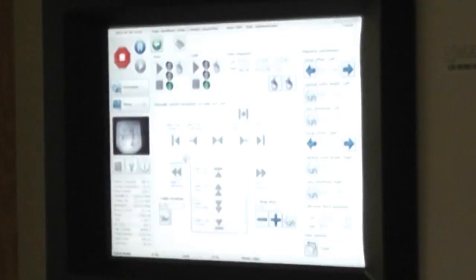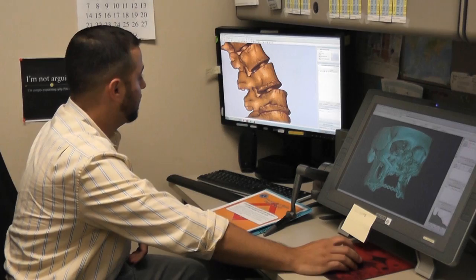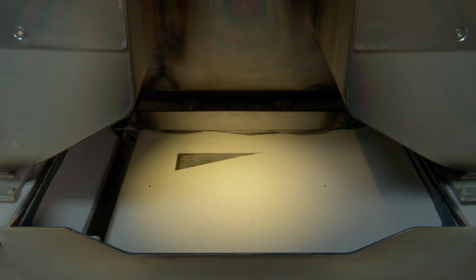What we're trying to build here is actually a prosthetic attachment for one of the patients downstairs who is missing at least his right arm. He wants to be able to eat crabs. So we basically took a utensil used for crab eating, replicated it, designed it in our 3D imaging software, and put it into the machine. It's a titanium apparatus so he can eat crabs. We take 3D images, slice them down into 50 or 70 micron layers, and print it out in titanium alloy powder using an electron beam to draw and melt the powder layer by layer.